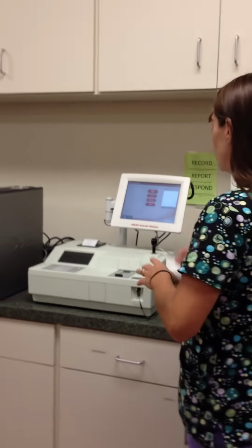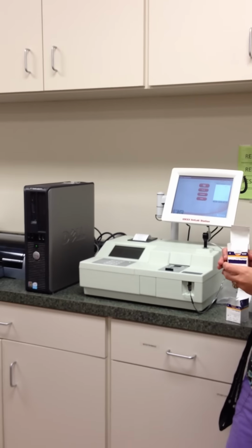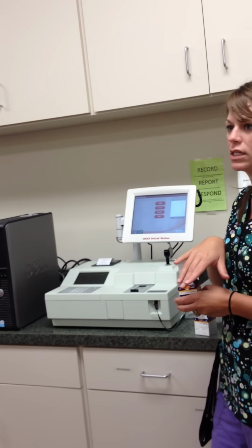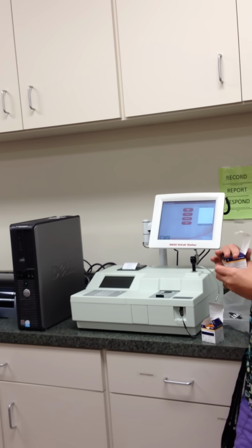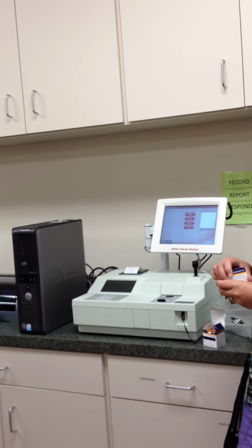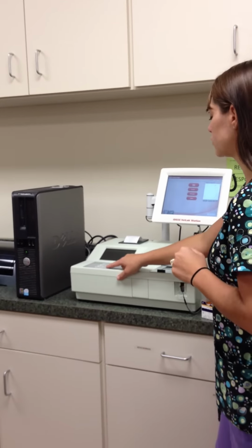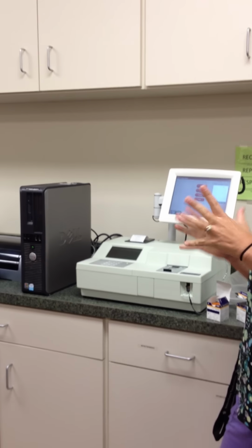If you're doing a full general panel, which we'll do on our older patients or patients that have elevated levels on our pre-anesthetic, it will automatically go to the next page once you've got all 12 in, because that's all it will accept is 12. Okay? In general, all of our patients are receiving pre-anesthetics unless Dr. Katie or myself or Megan otherwise indicates. Okay? All right, so we'll say I've got them all in. You're going to press enter. It's going to read your barcodes.